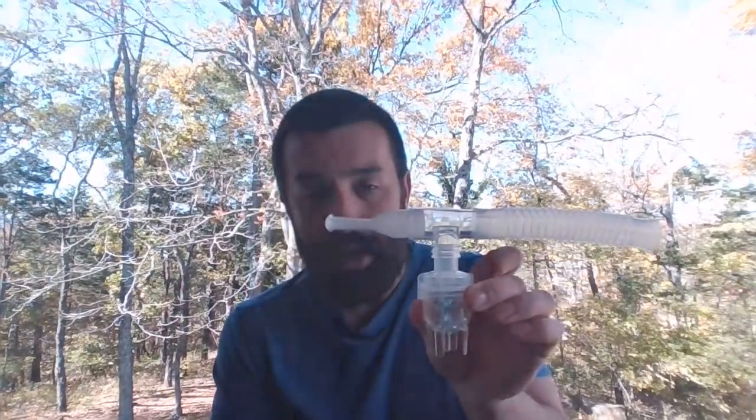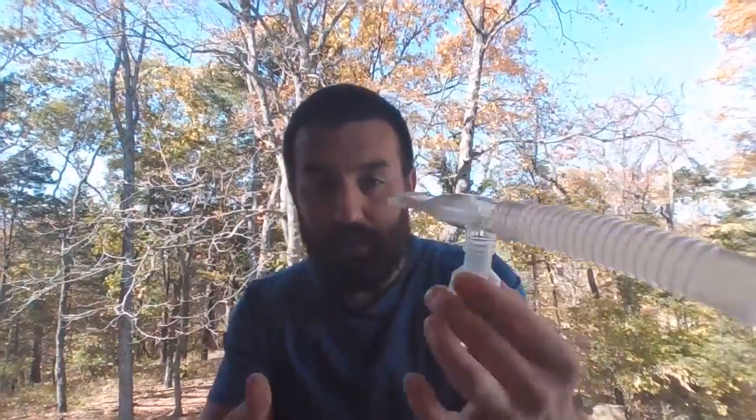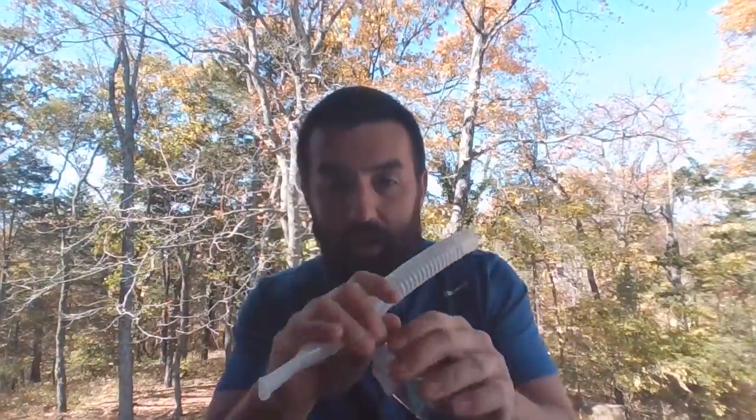Okay, if we're doing a mouthpiece treatment, you would do the same thing. Once again, with the little green, nothing changes, just the hookup. Now, as far as liter flow going through this, everybody's a little different. I read the manufacturer's stuff. A lot of these nebs for small volume nebulization would be like 6 to 10 liters a minute. I tend to try and target the middle ground, 8 liters.